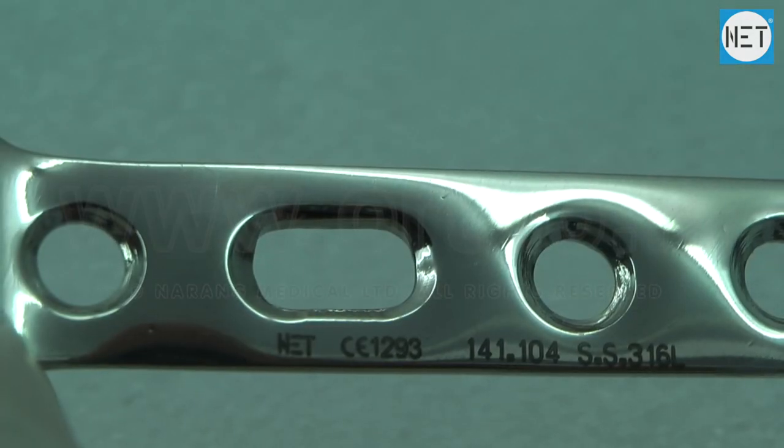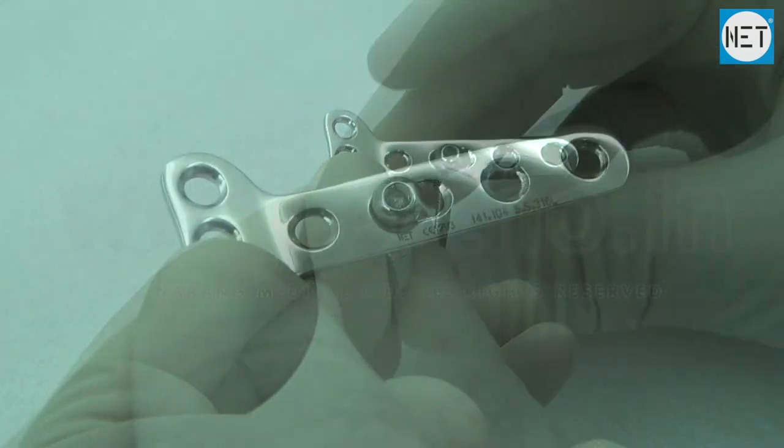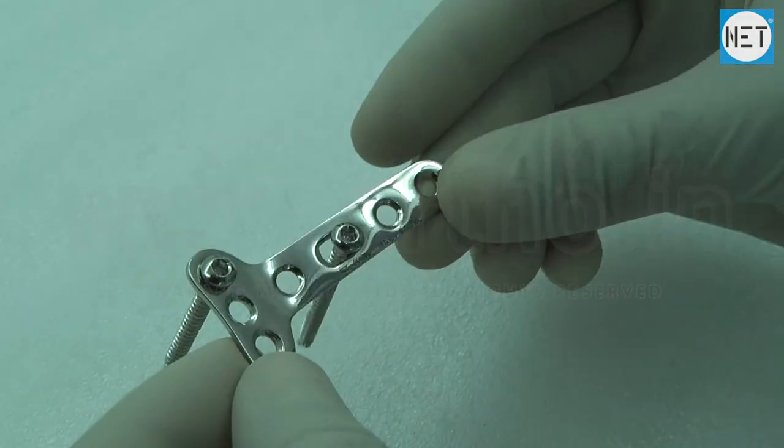All holes of the head allow 3.5 mm cortex screws and shaft allows 3.5 mm cortex and 4 mm cancellous screws.